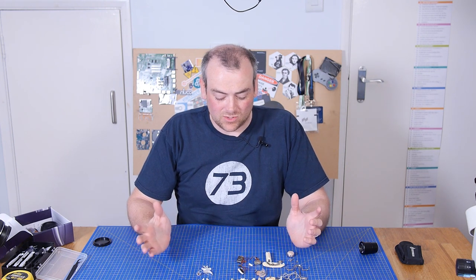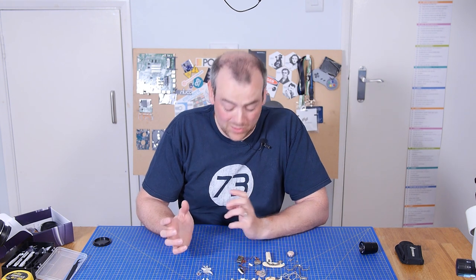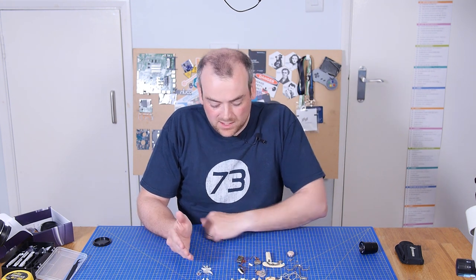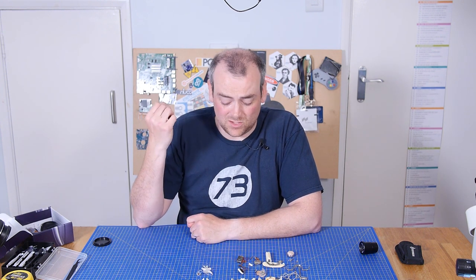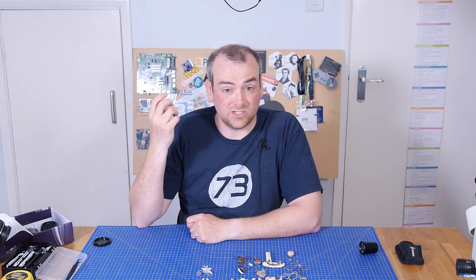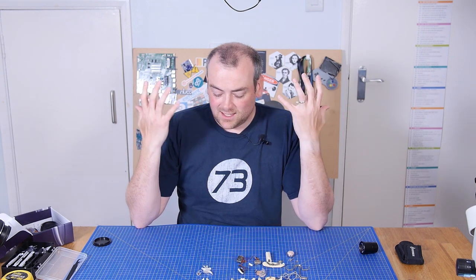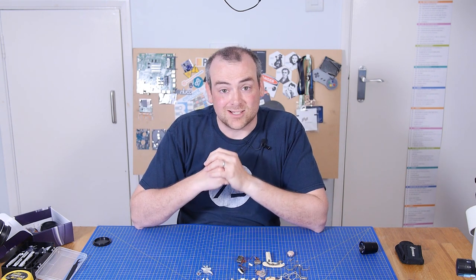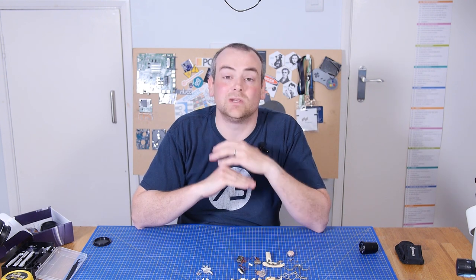In all its glory, that is exactly what you get inside a modern hearing aid. The transition from this vintage device to this modern one is absolutely mind-blowing, and the capability of modern hearing aids is incredible. You can stream audio directly into them using induction loops and Bluetooth, you can make minor tweaks, they've got digital sound processing to filter out ambient noises that aren't speech. They are amazing, and the difference they make to somebody's life who has trouble hearing is truly invaluable.